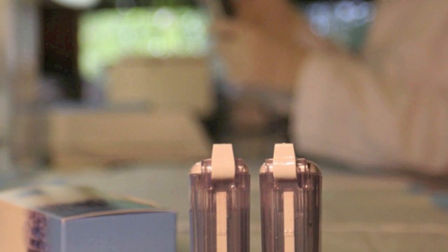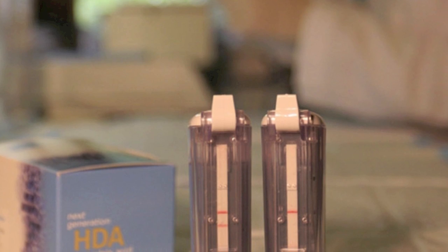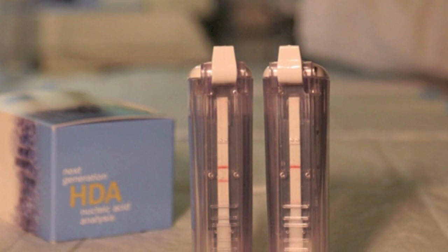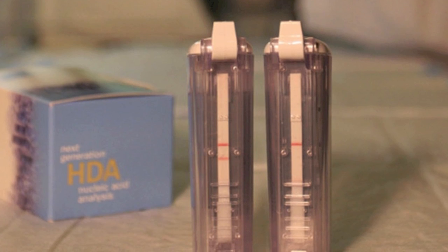The ISOAMP HSV assay is a rapid in vitro diagnostic test for the direct qualitative detection of herpes simplex viruses type 1 and type 2 in genital and oral lesions.